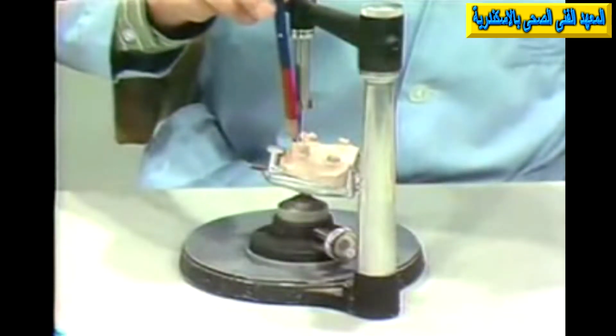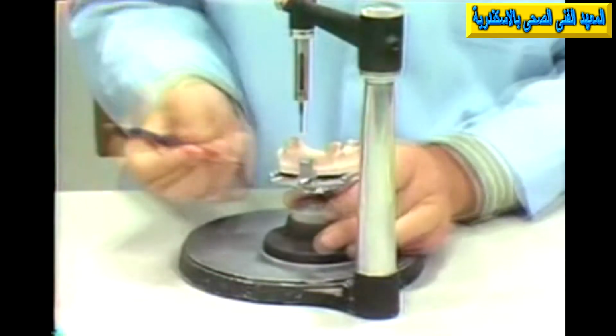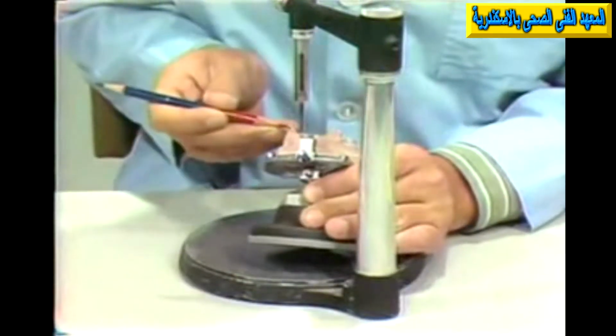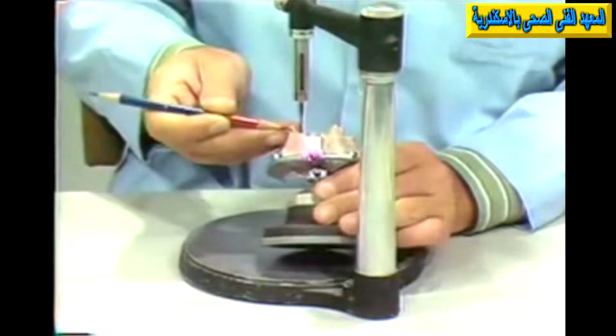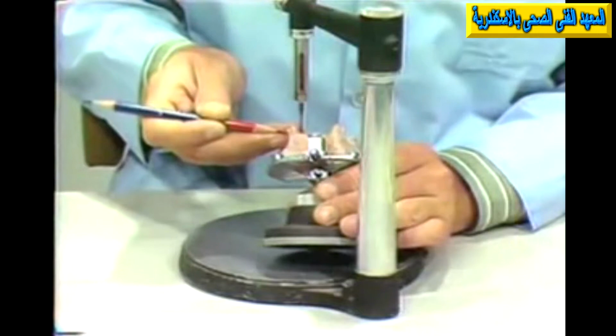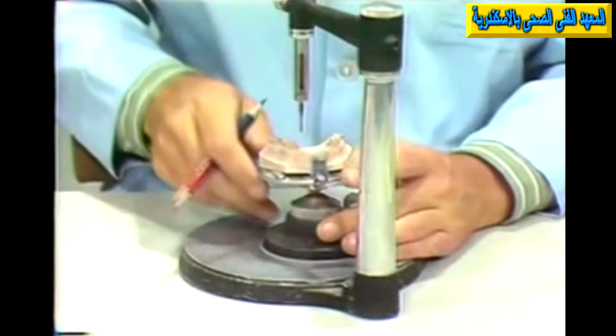This area here constitutes a retentive undercut and would require us to place a clasp right out in the face of that cuspid, so that in our final result we might set up very aesthetic looking anteriors, 4 anteriors across this section, and yet in the area of the cuspid right across the most conspicuous portion of it we might be faced with a rather conspicuous metal clasp.